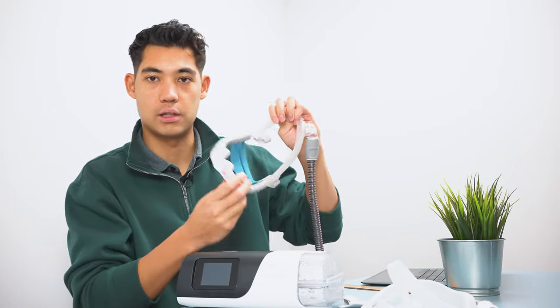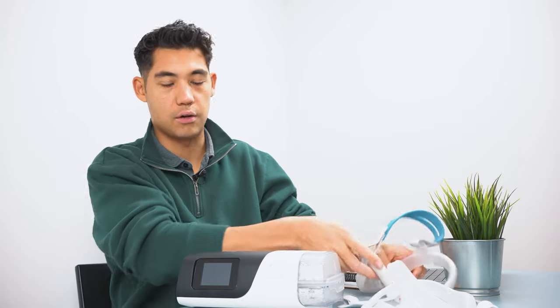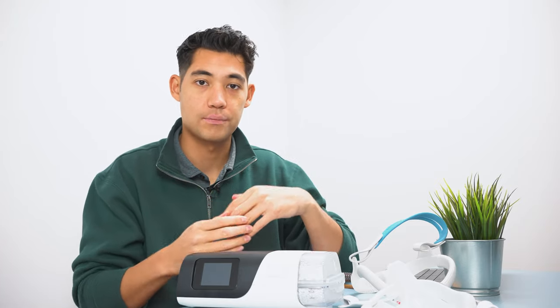Now today we're going to be talking about dry mouth. What is dry mouth? Well, lots of times when you're using your CPAP machine like this, especially like a nasal cradle or pillow cradle, anything that doesn't cover the mouth, you're going to be having some of that pressure go out of your mouth, especially if you're using a little bit too much pressure. That extra airflow is going to go through your nose, and sometimes if your mouth is open, going to go out of your mouth.